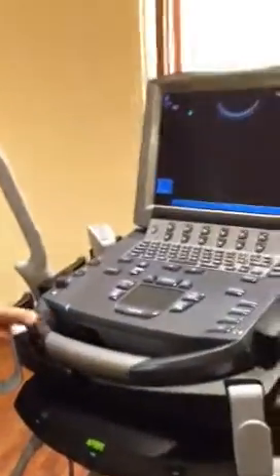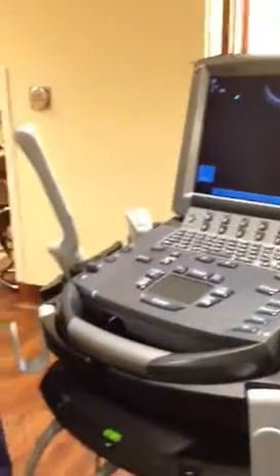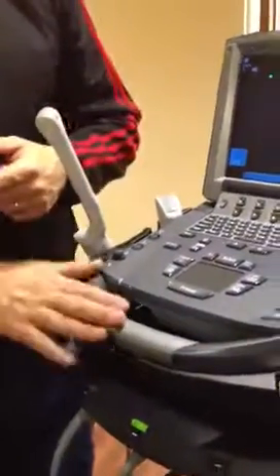They're covered in a 5-year warranty. Just call Freddie. Freddie will call our tech support. They will overnight a loaner, and they'll just swap boxes. You use the loaner free of charge until they get yours repaired. All right. That's pretty much it.